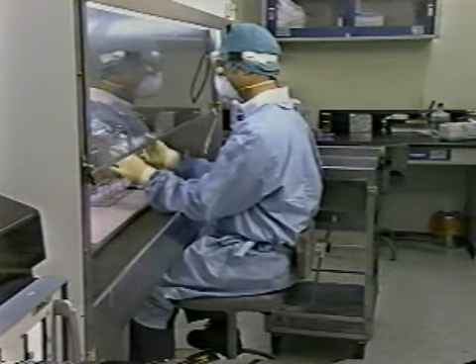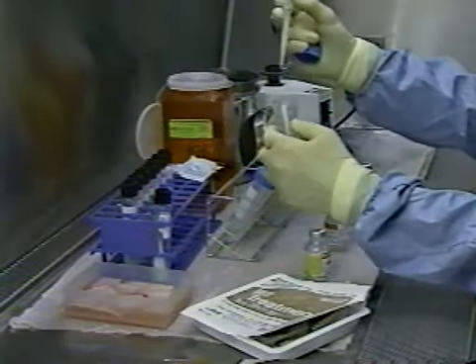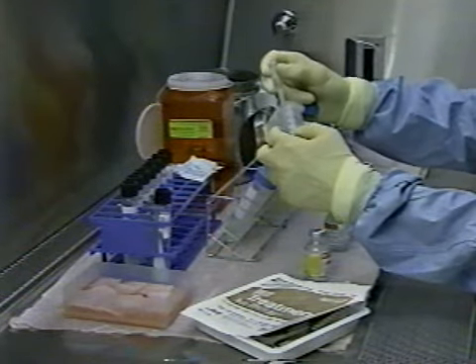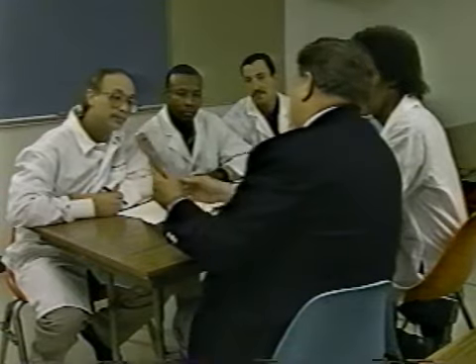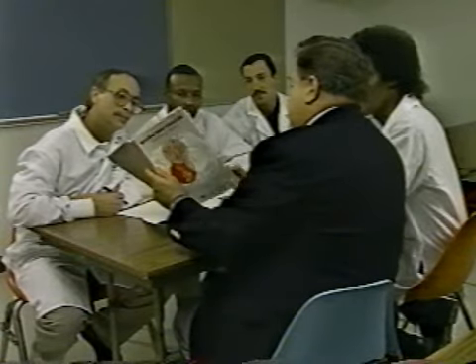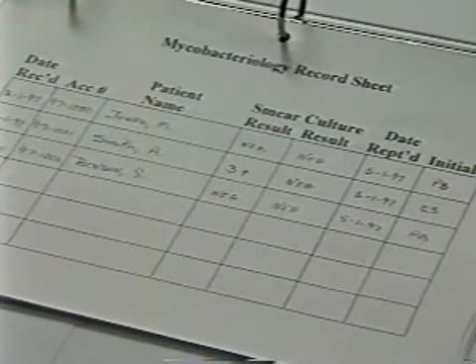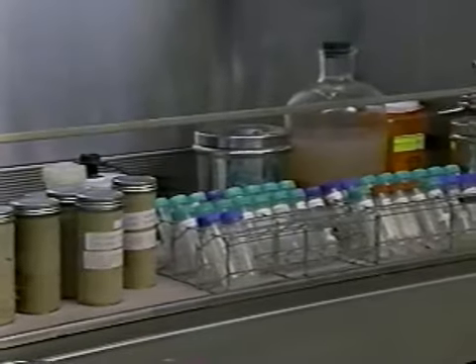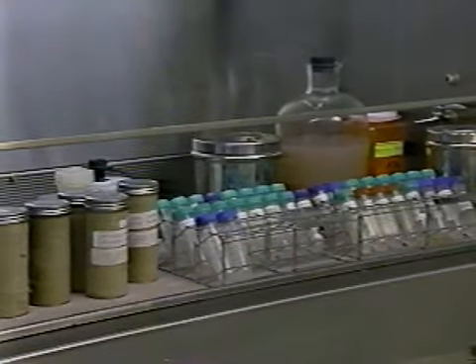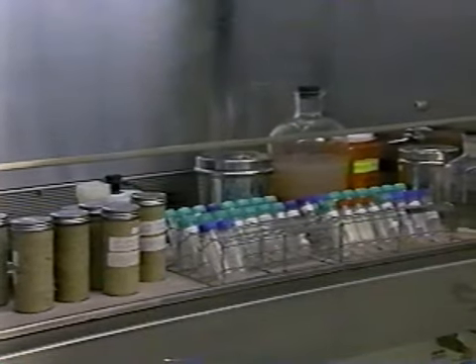Because of this heightened awareness, more laboratories are processing more specimens. However, many laboratory personnel have not had extensive experience or the opportunity to develop strong competence in mycobacteriology testing. Such deficiencies could lead to an increased likelihood of procedural lapses and the possibility of false positive test results. As more specimens are processed, the risk for carryover of organisms from specimen to specimen increases.